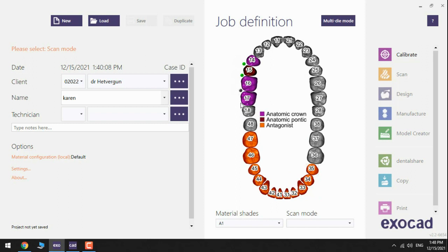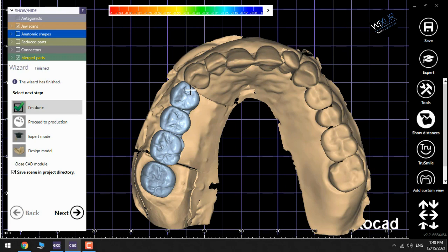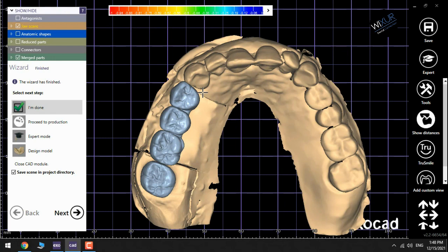So in order to start, we are here at the final stage of designing the bridge. I see the window, I'm done on the left side.